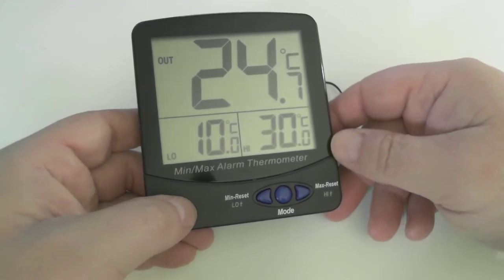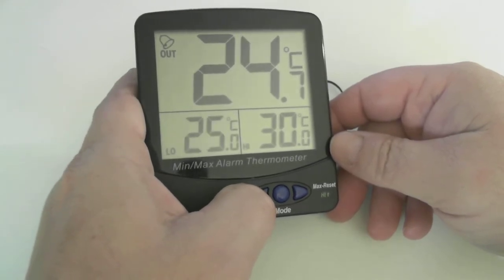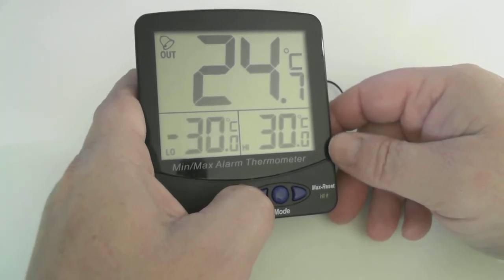To change the low, let's set it for a vaccine, 2 degrees. Hold the button to press it. And the scale will go up to 70 degrees C and come back to minus 50 degrees and back up.